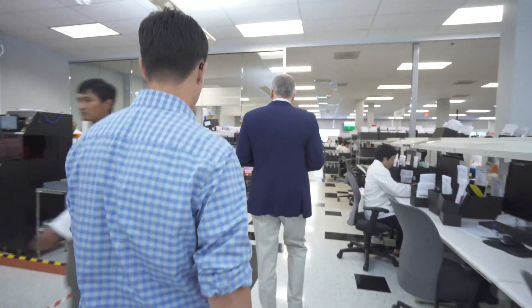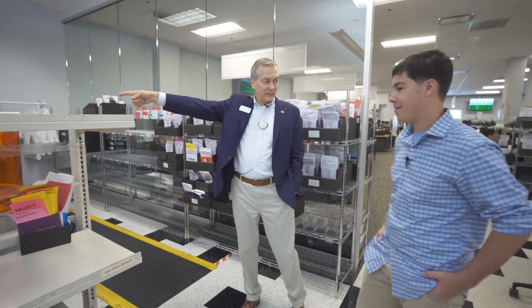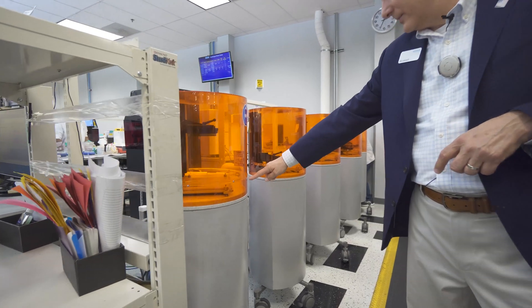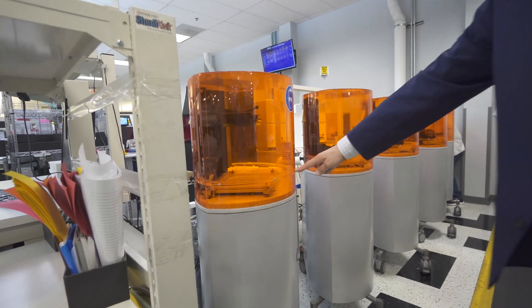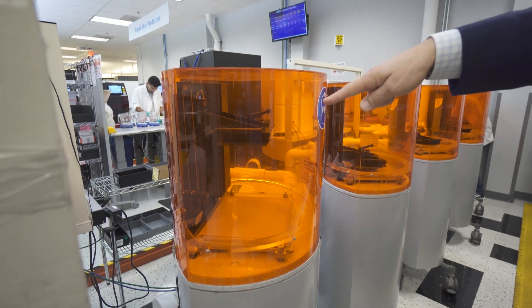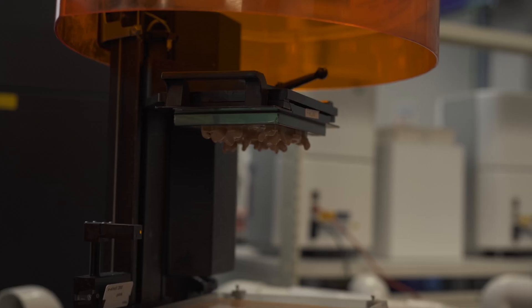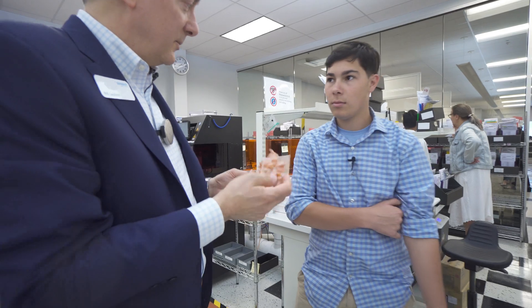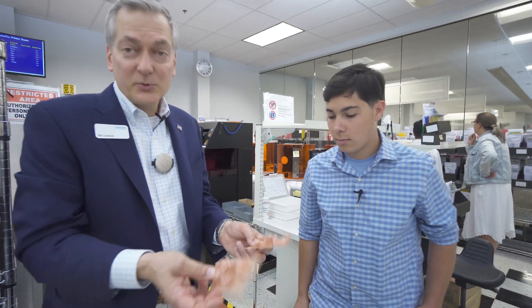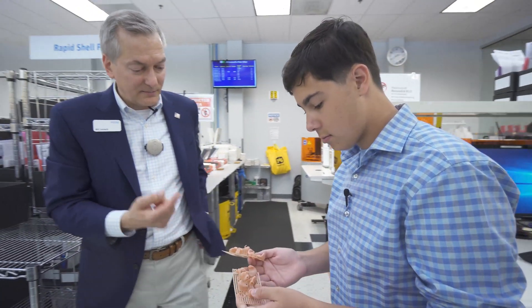All these machines — the ones with the orange cones or the tall black rectangular ones — are 3D printers. You can see a glass tray filled with liquid acrylic, and there's an armature holding the build platform where we actually print the shells. When a print run is done — these are just dummy test ones — but this is what they look like when they come out. That's what's been printed by the 3D printer.